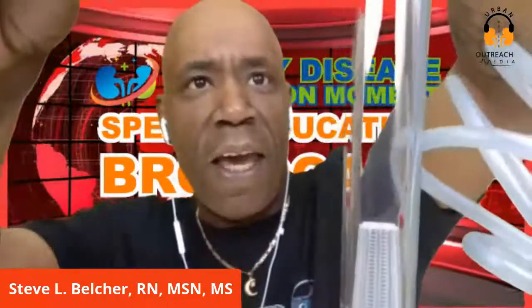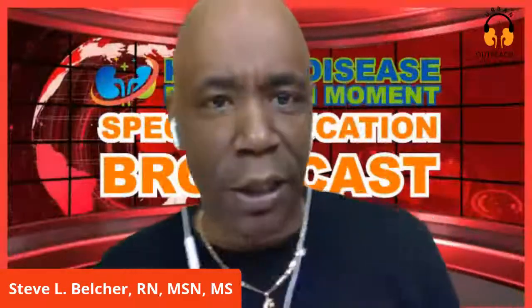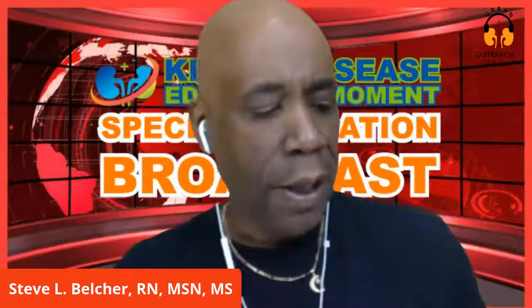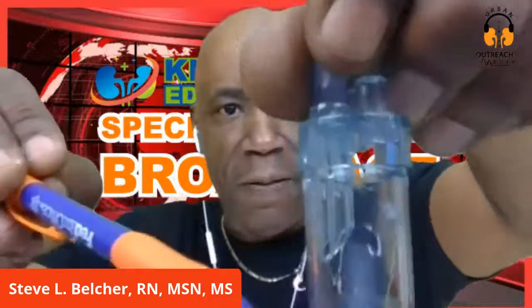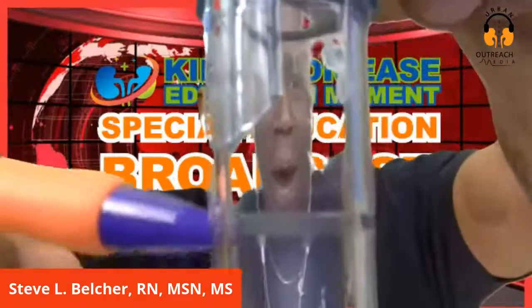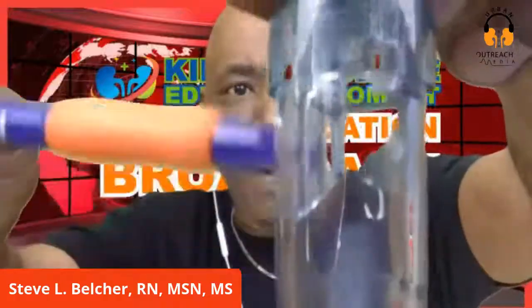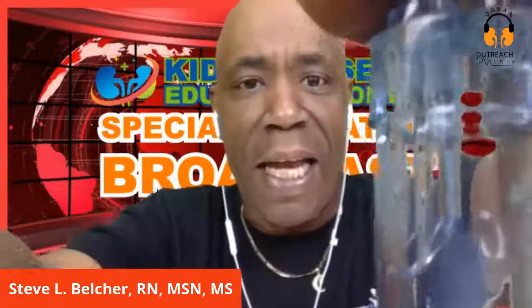But if air gets in here and the level drops down, it can travel to the patient and get right into them. You have to make sure this venous chamber is filled three-quarters full. You can even see the line on it - that's why it's there, because the blood is supposed to stop right there to give room to flow. The level should not be down low - that's almost close to getting air into the system. It's supposed to be up here.